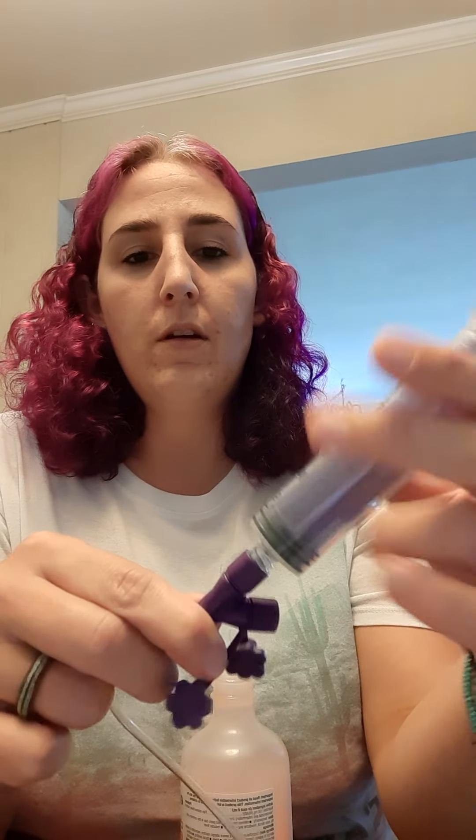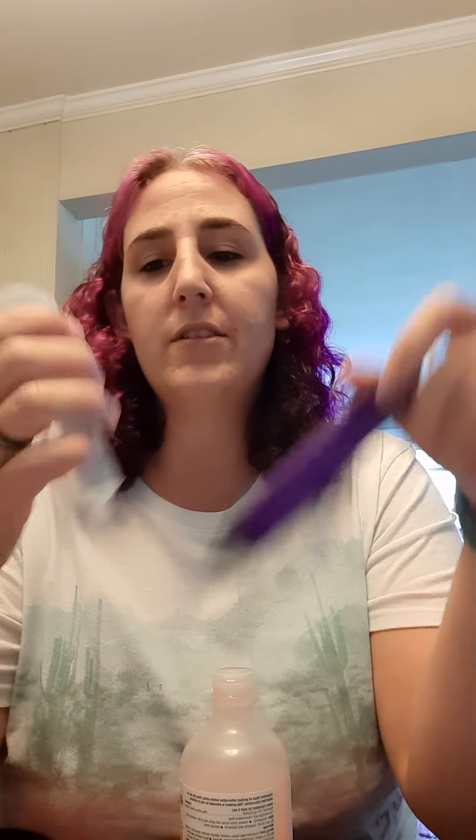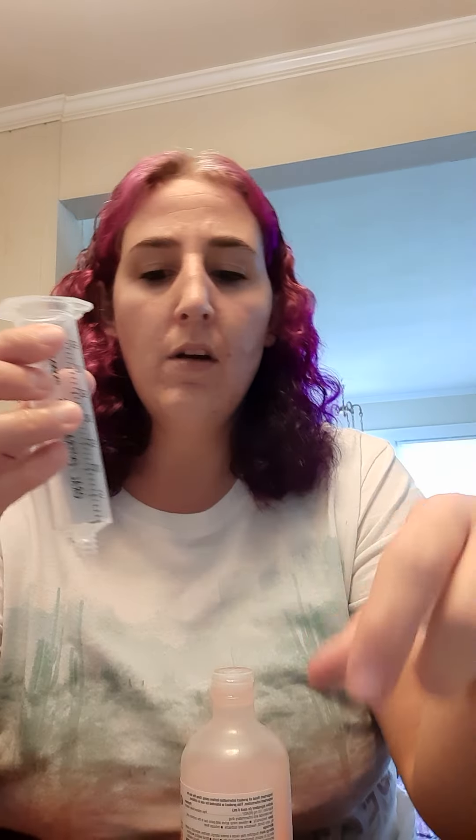The problem is that with the old syringe, it was really easy to draw up meds — they plugged in well and drew up cleanly. With this new screw-top syringe, it's very secure and screws into extension sets easily, but it doesn't work for drawing up meds. I discussed this with our pharmacist. Options included removing the plug, pouring into a cup, then drawing up — or using two syringes. Both seemed like a hassle, and you risk a lot of air bubbles with stretchy suspension fluids.